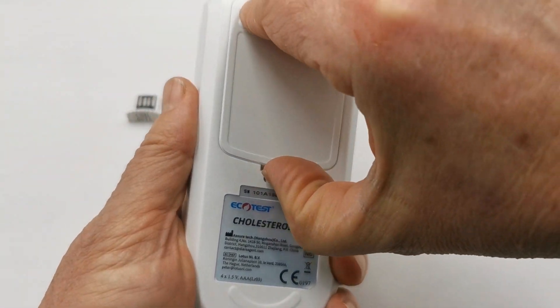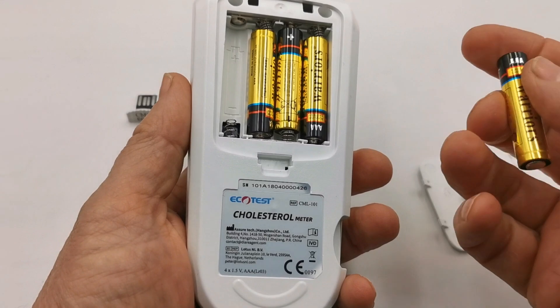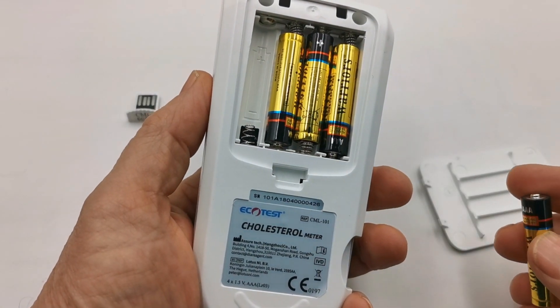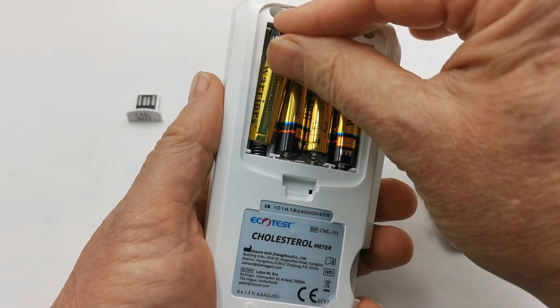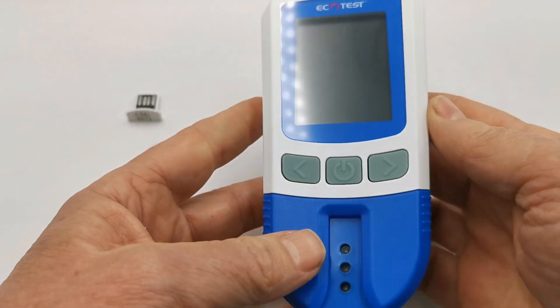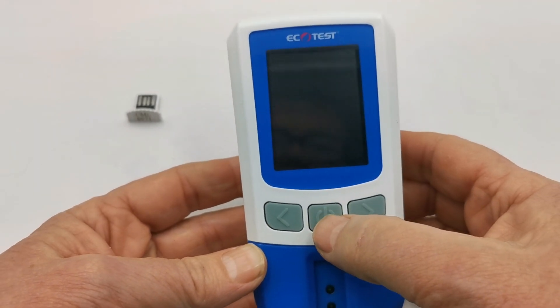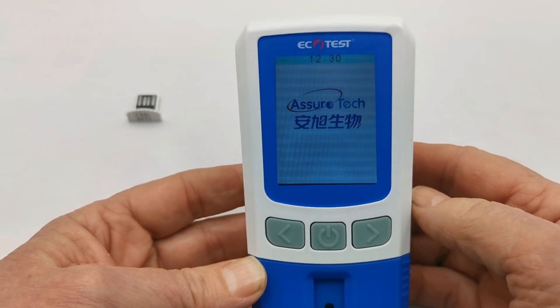On the rear of the meter is the battery cover. Remove this and align the batteries. In the base you'll see alignment guides for how they are inserted. Insert the final one and you'll hear the meter give a little beep. Replace the battery compartment and then turn the meter over and hold and depress the power button in the center — the meter should power up.